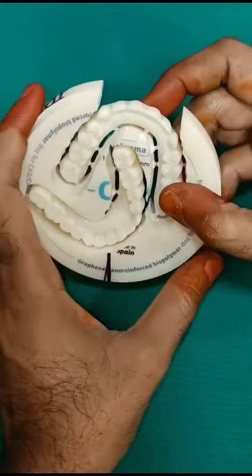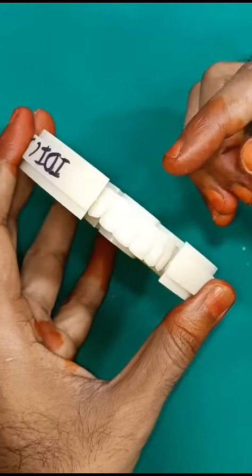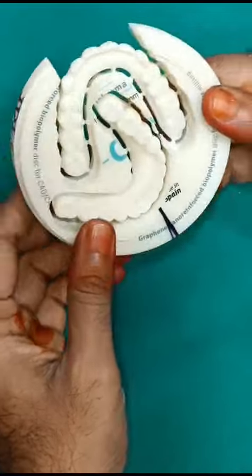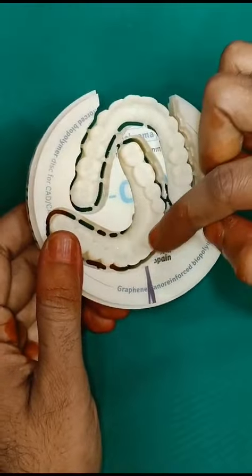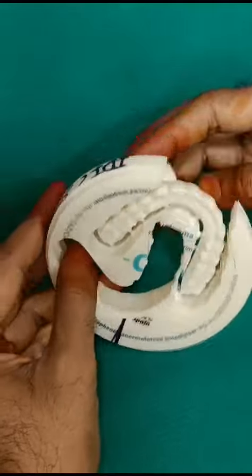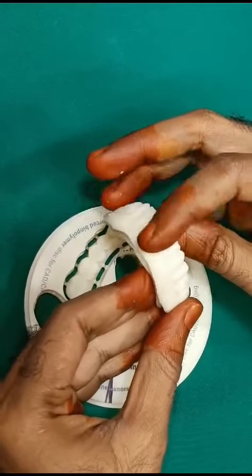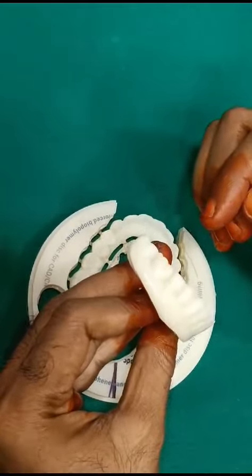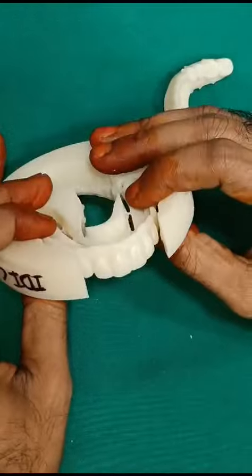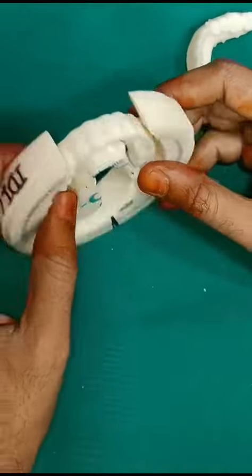The upper canine to canine teeth are positioned close to the outer rim because of the drills. This outer rim is close to the rims, and there is something called 90-degree milling. If we employ 90-degree milling in the CAD/CAM machine, the upper canine to canine contours will come out very beautifully. If this location is not nested properly, the anatomical contours won't come correctly — for example, in the lower the anatomy is okay but not very accurate, so we have to use a bur to do reshaping.